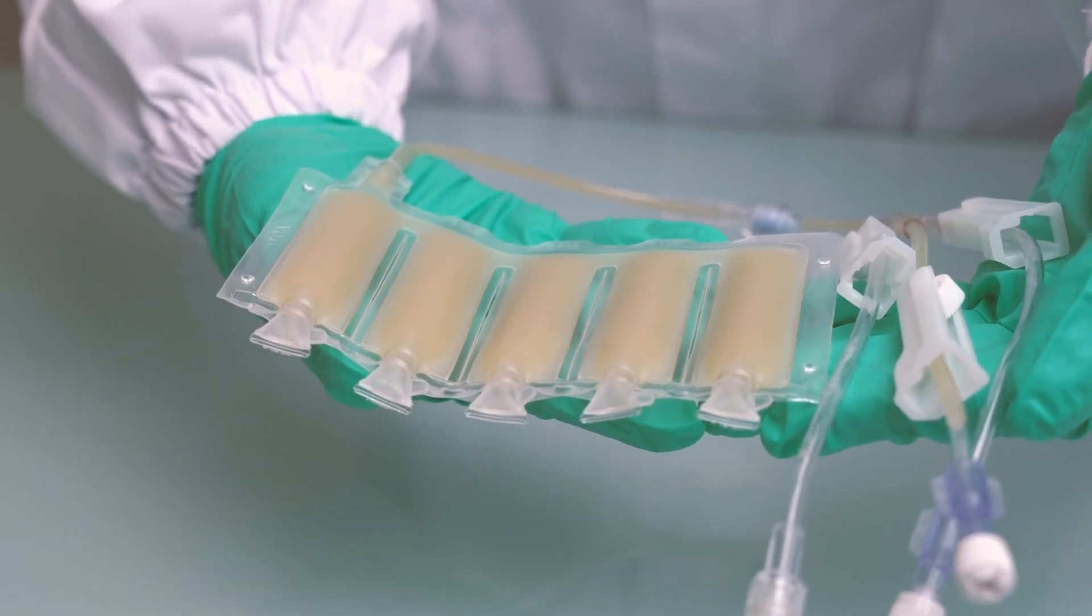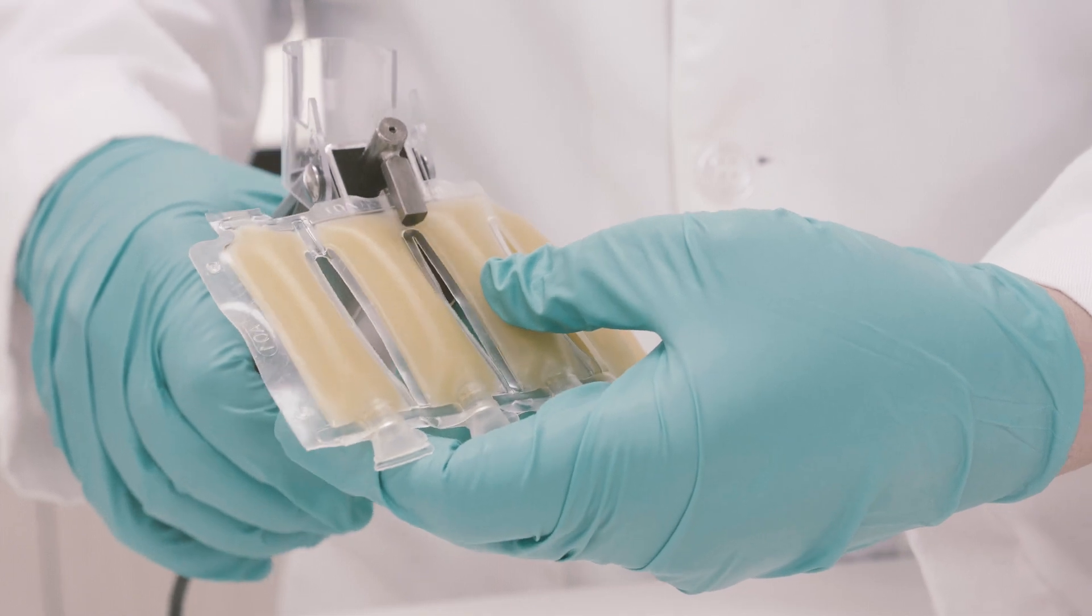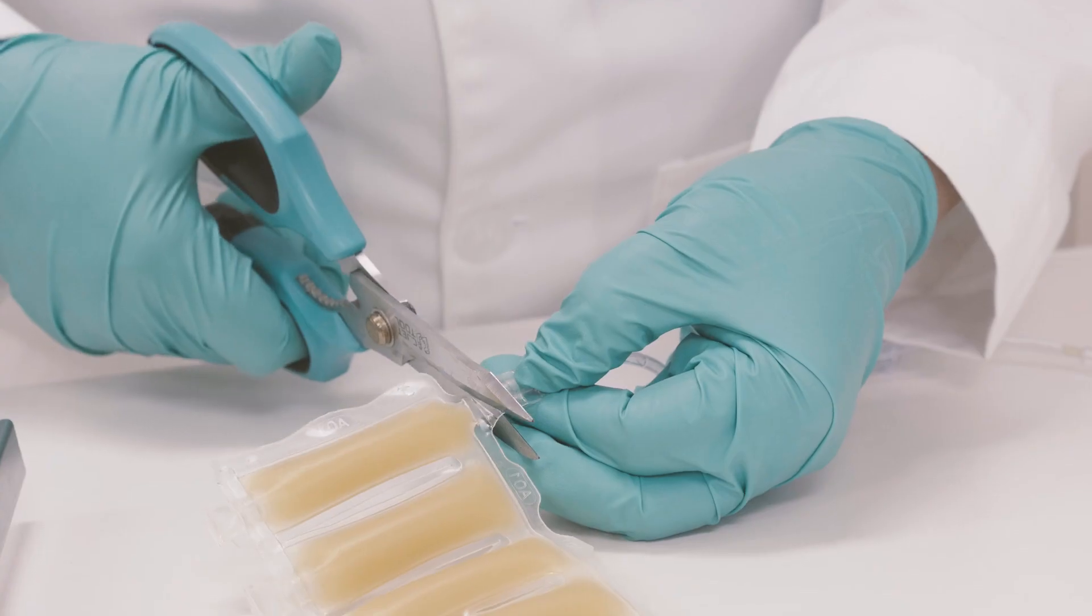A variable number of compartments can be utilized, tailored to the specific cell requirements of each patient, enabling precise and customizable treatment.